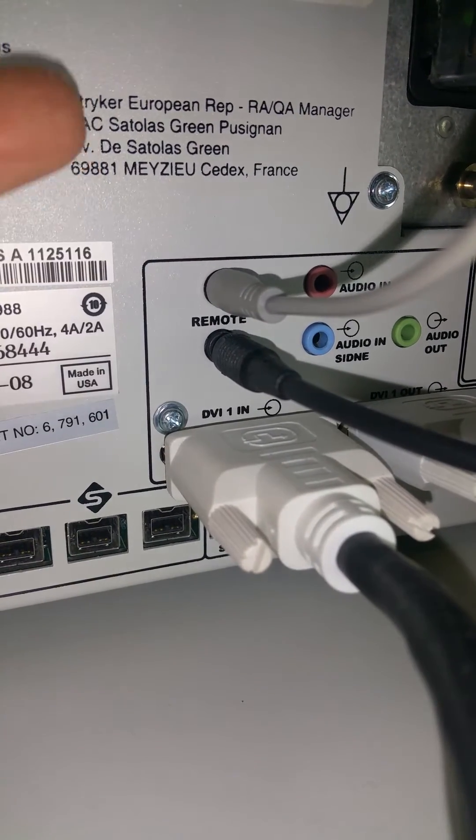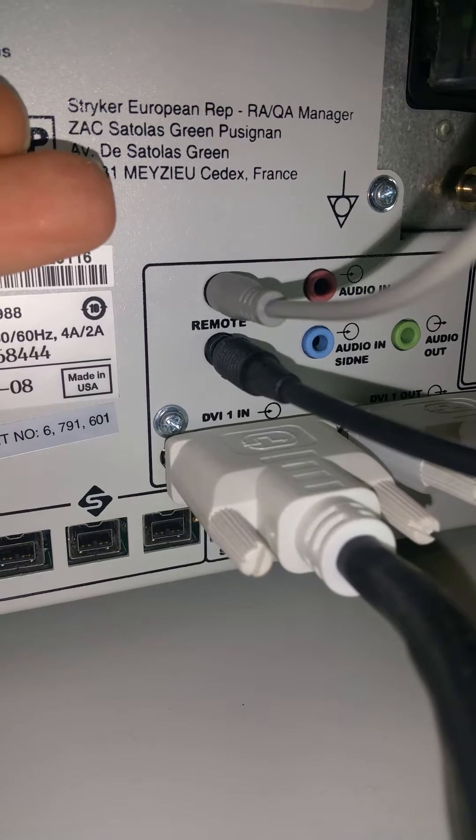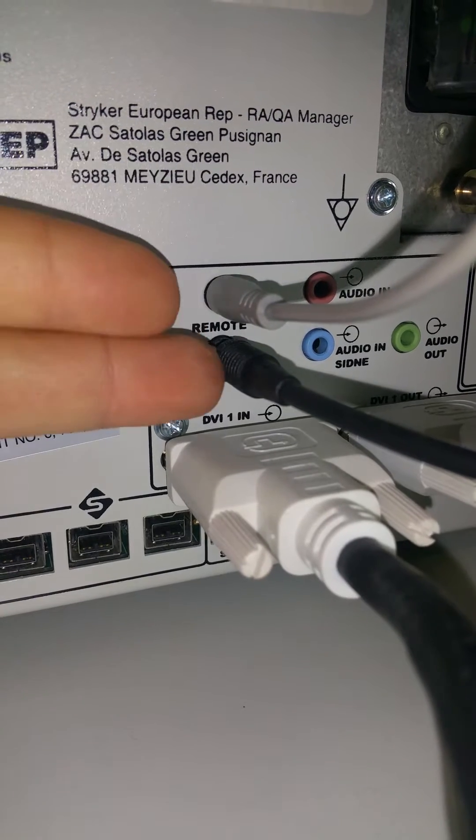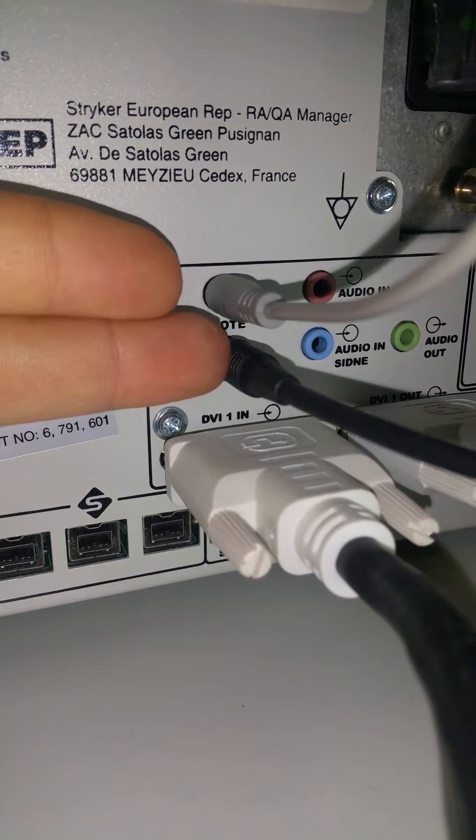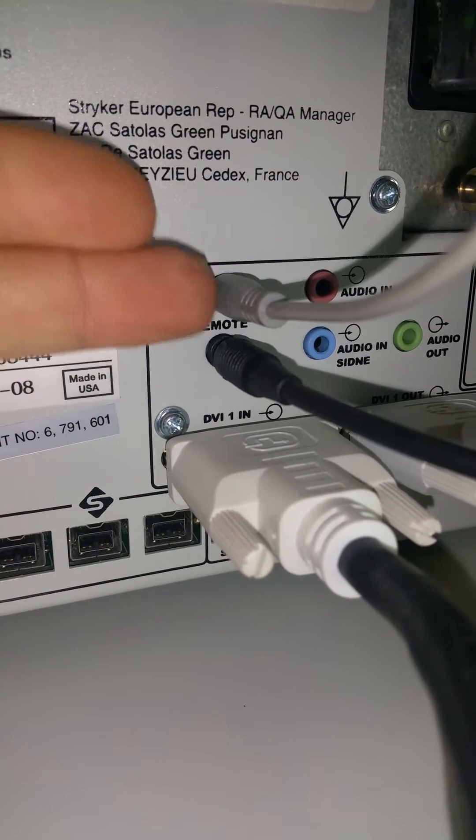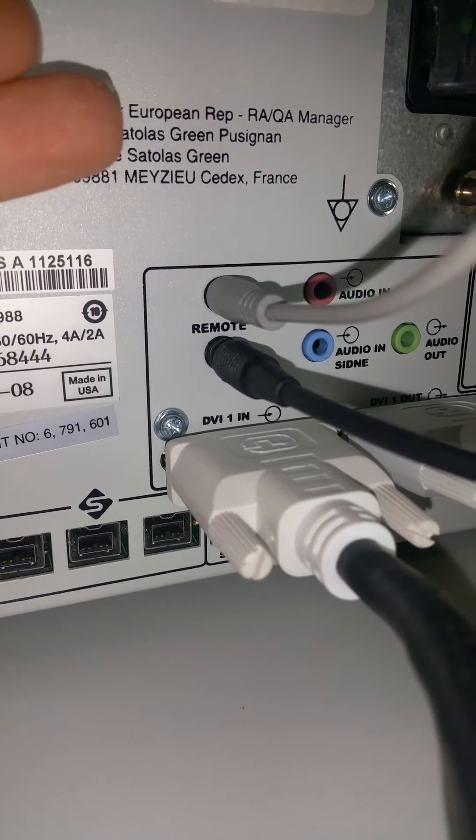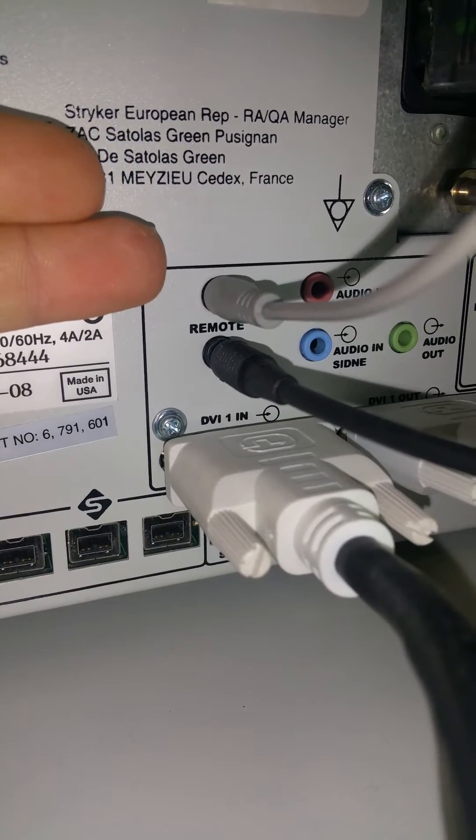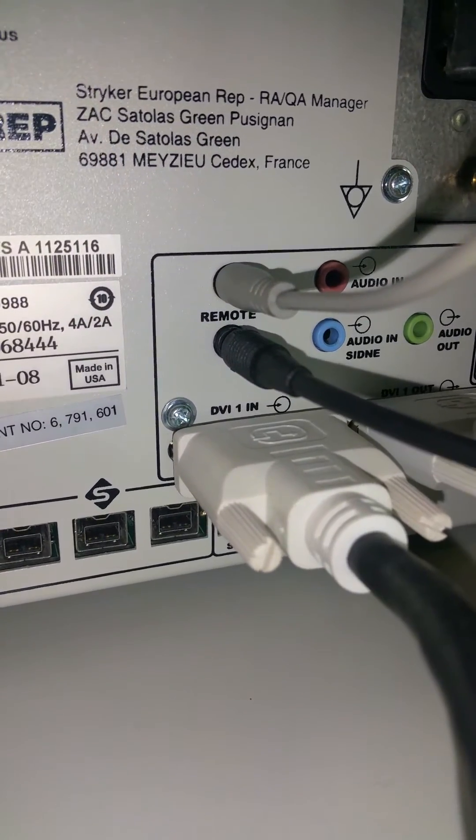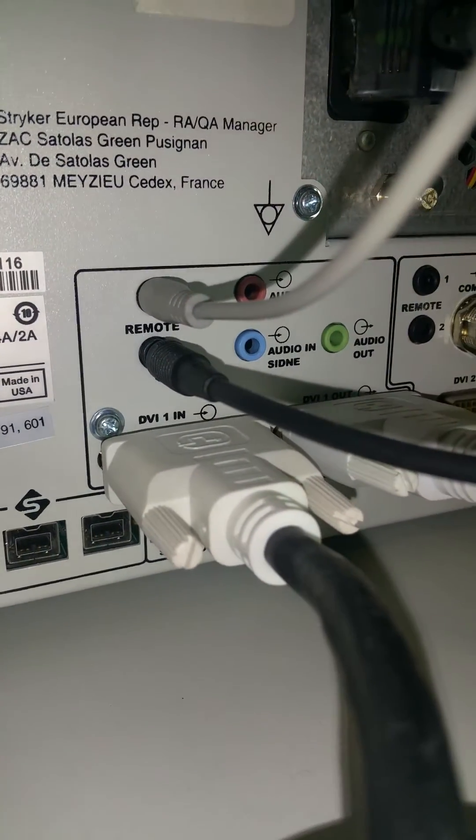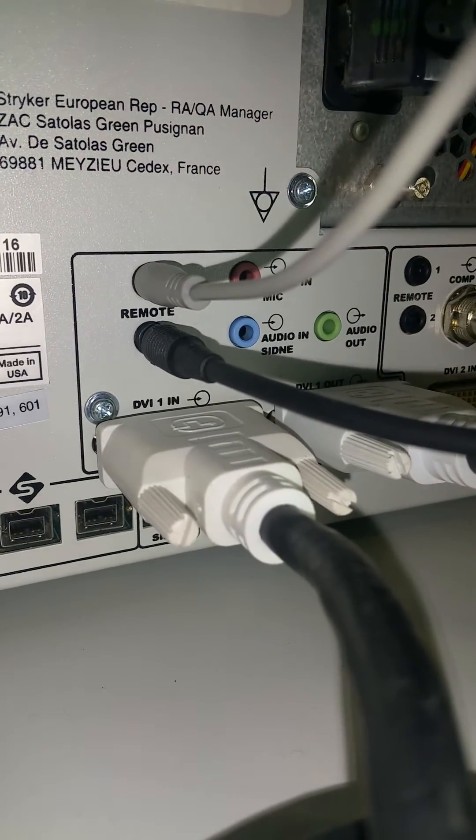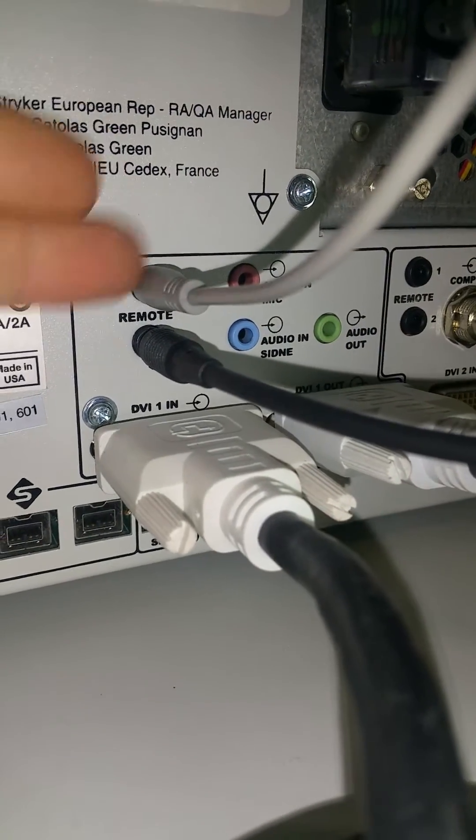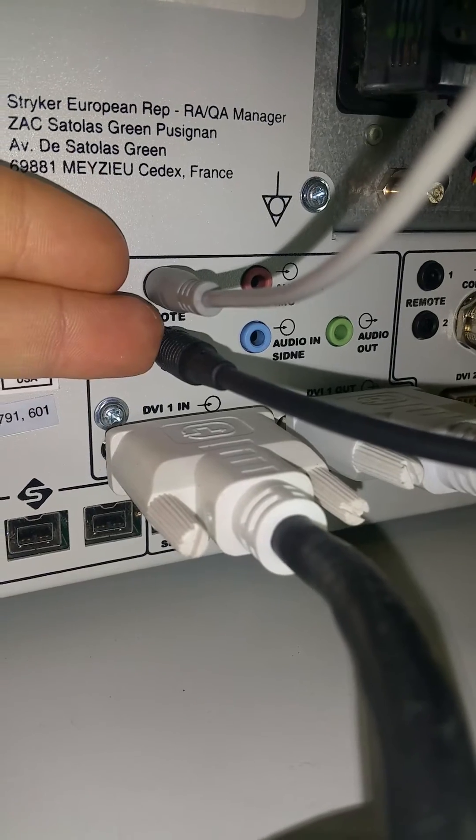Well, the reason it would do that is if these were actually swapped. So it's just good information, just something to keep in mind. So your camera box is hooked up here via your remotes.